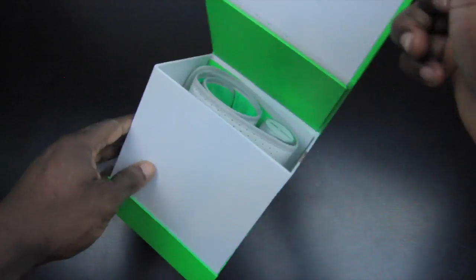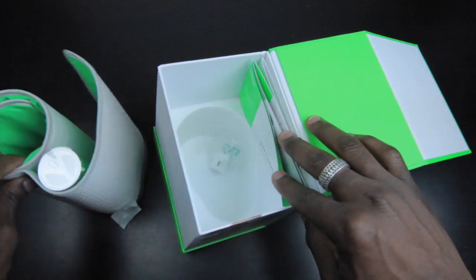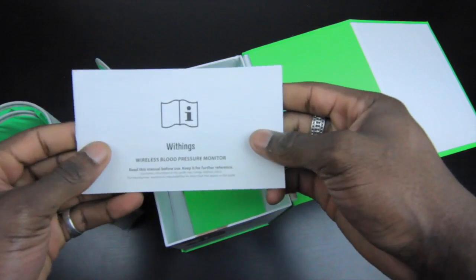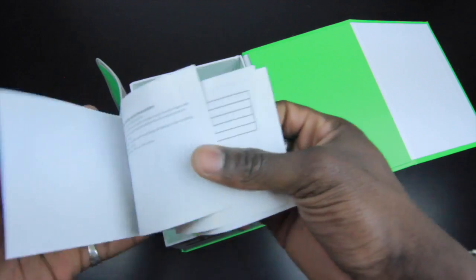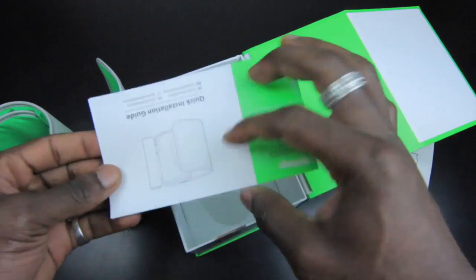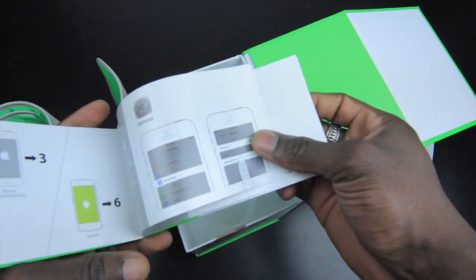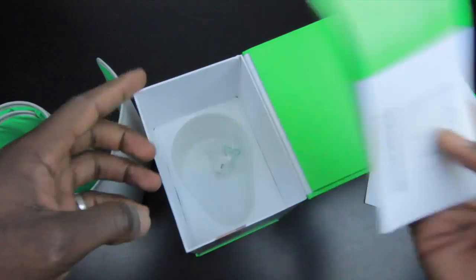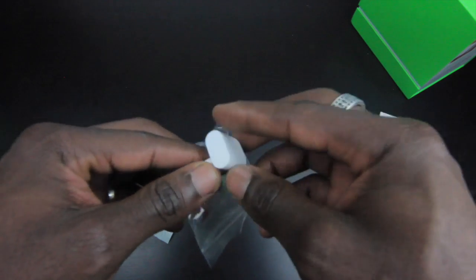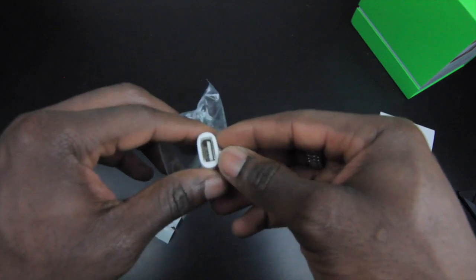Taking this out of the packaging — really nice packaging. Here's the product itself. You also get a wireless blood pressure monitor user guide with all the information you need, some additional packing material, a quick installation guide to get you going as soon as possible, and a small USB adapter that you use to connect directly to your smartphone and the Withings app.